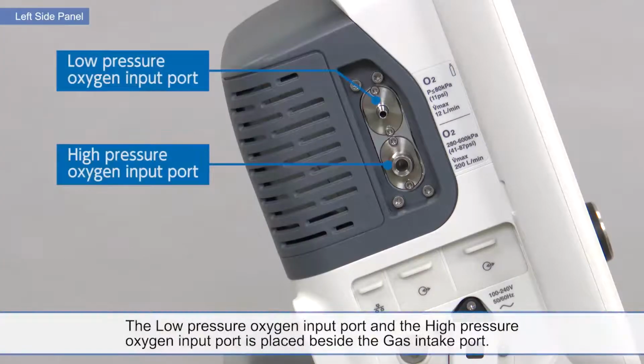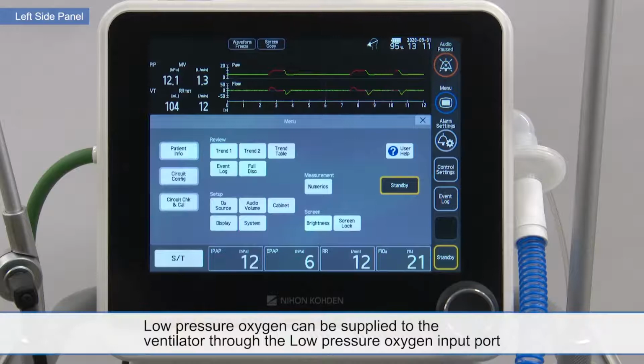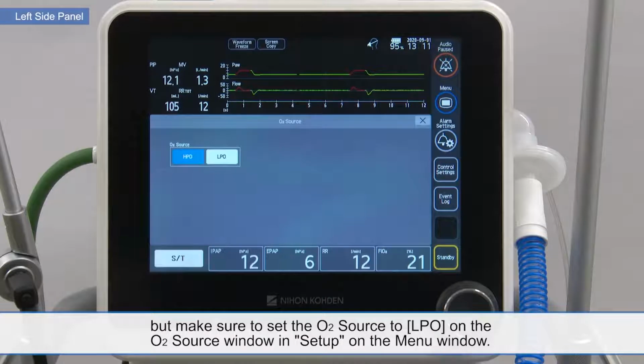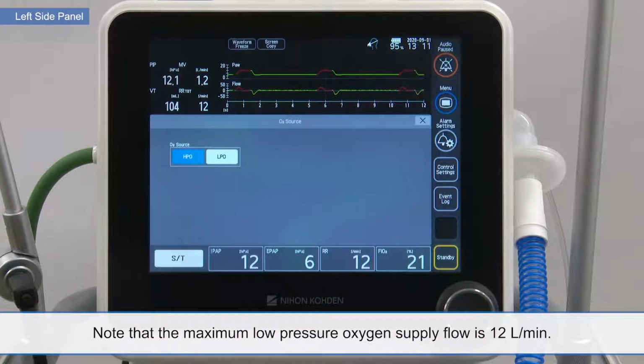The low-pressure oxygen input port and the high-pressure oxygen input port are placed beside the gas intake port. Low-pressure oxygen can be supplied to the ventilator through the low-pressure oxygen input port, but make sure to set the O2 source to LPO on the O2 source window in Setup on the menu window. Note that the maximum low-pressure oxygen supply flow is 12 liters per minute.